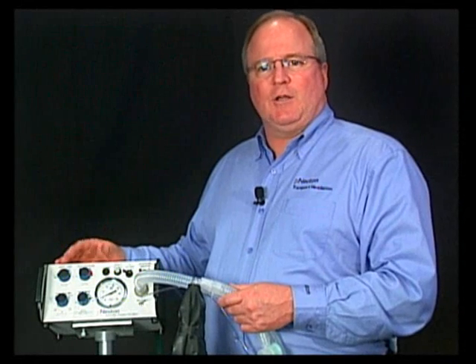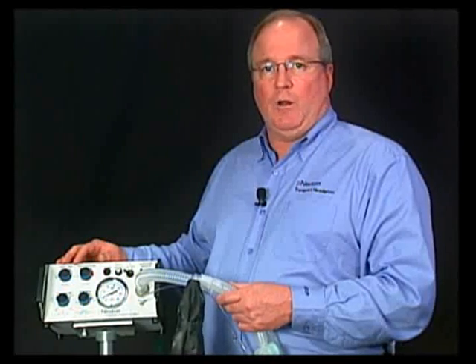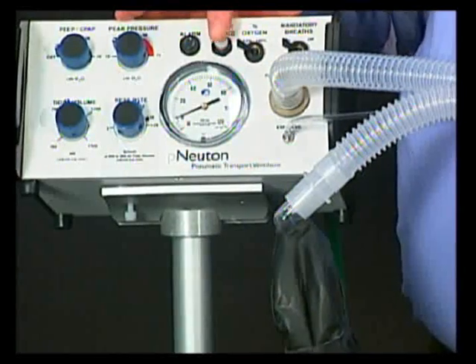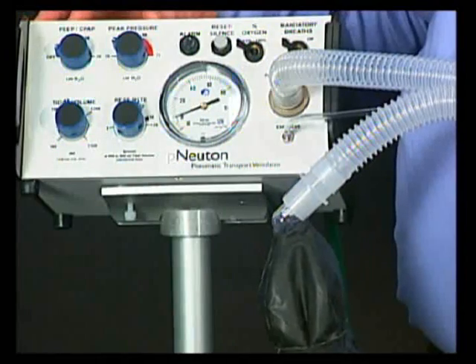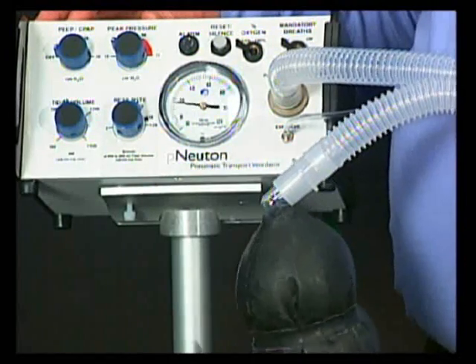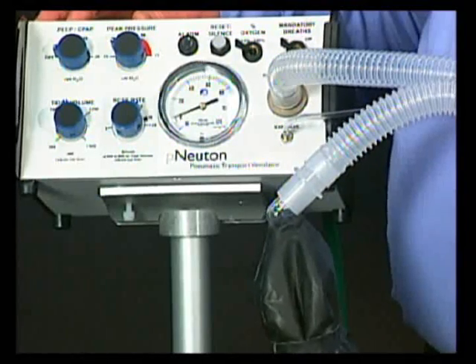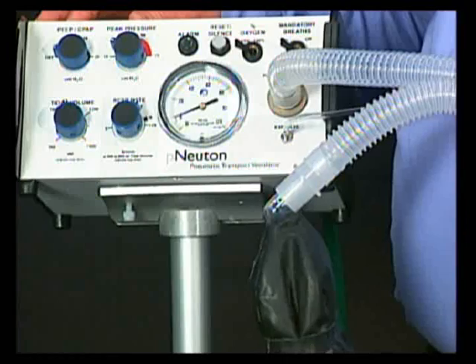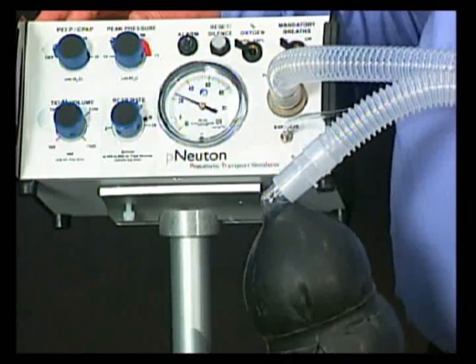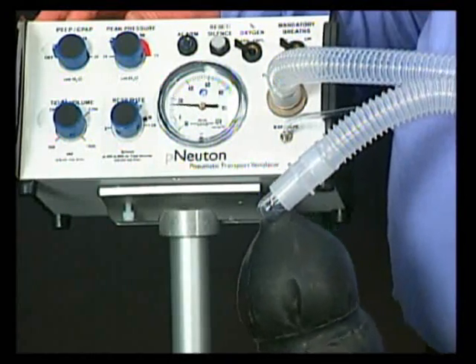Let's now take a look at the operation of the ventilator. When we first turn on the gas, the ventilator will alarm. Press the reset/silence button to silence the alarm for one minute. The alarm is set to sound after 20 seconds if no mandatory breath is delivered with a minimum of 15 centimeters of water, if the CPAP is set at less than 4 centimeters of water, or if there is a loss of gas supply.